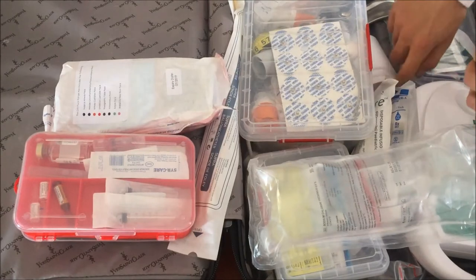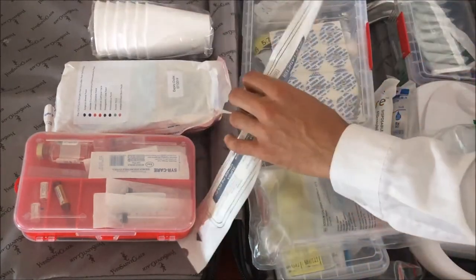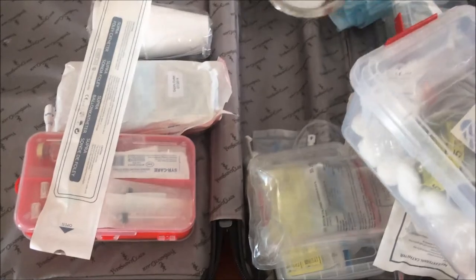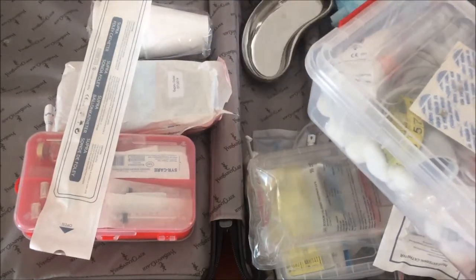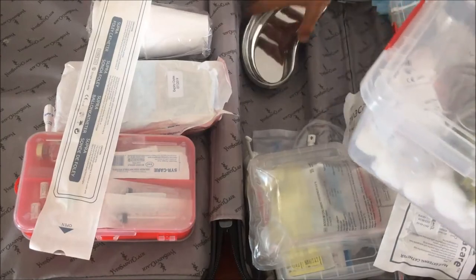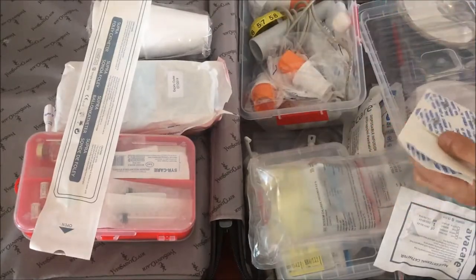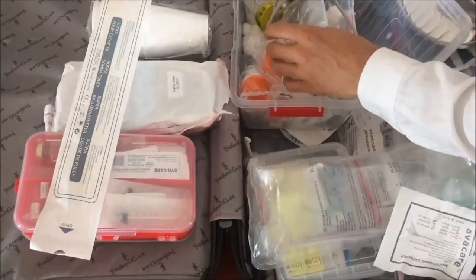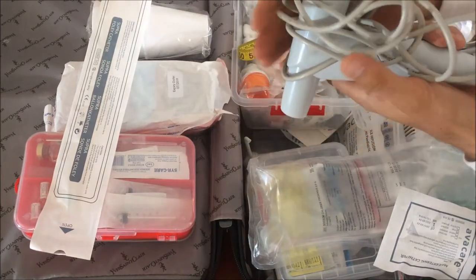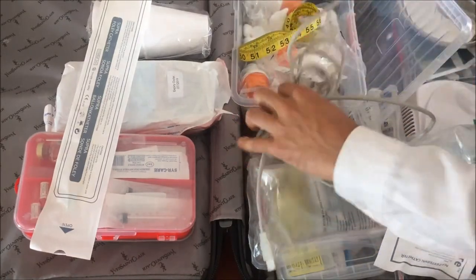I don't really consider myself to want to have a traveling pharmacy. Some paper cups for urine samples or whatever other sample I need to collect. And a kidney dish, because somehow or other you'll always need a kidney dish. In this box I've got everything I need to take blood tests with. A linen saver in case I'm worried I'm going to spill stuff. In this box I've got a couple of extra ECG stickers. And then here is my lung function machine and a couple of extra cotton balls. This is a portable lung function machine — I can use it to measure how well the lungs work. Very useful in diagnosing asthma or various other lung conditions.